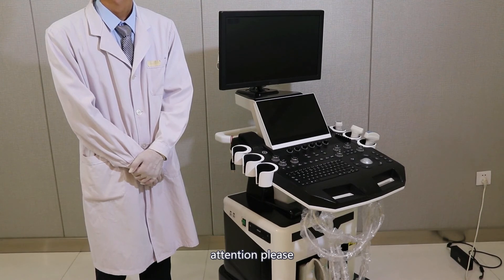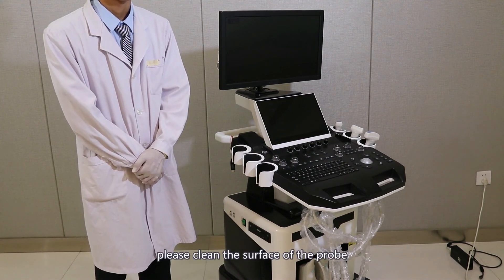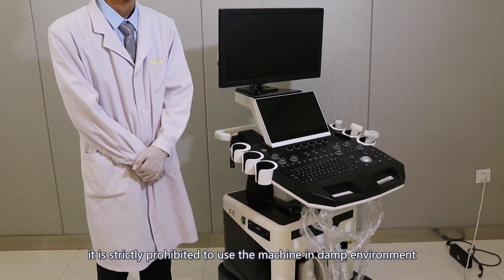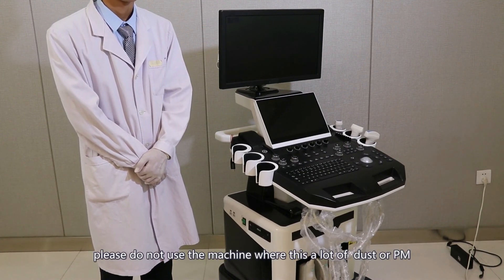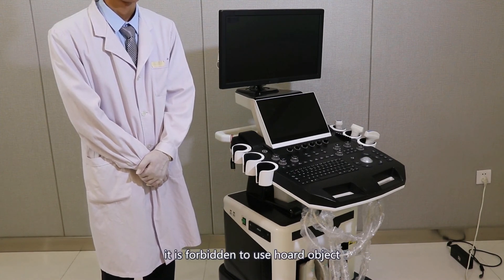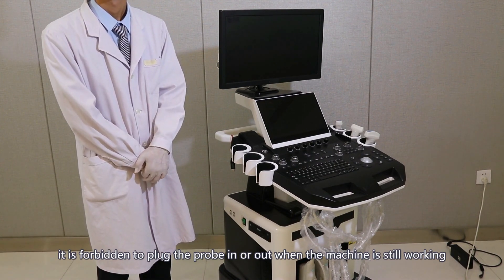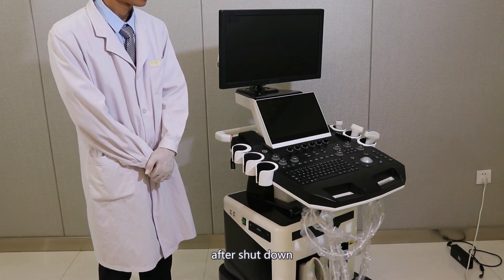Attention: please clean the surface of the machine with dry cloth regularly. Please clean the surface of the probe with soft gauze or paper regularly. It is strictly prohibited to use the machine in a damp environment. Do not use the machine where there is a lot of dust. It is forbidden to use a hard object to hit the probe, or to plug the probe in or out when the machine is still working. After shutdown, wait more than 2 minutes before restarting the machine.